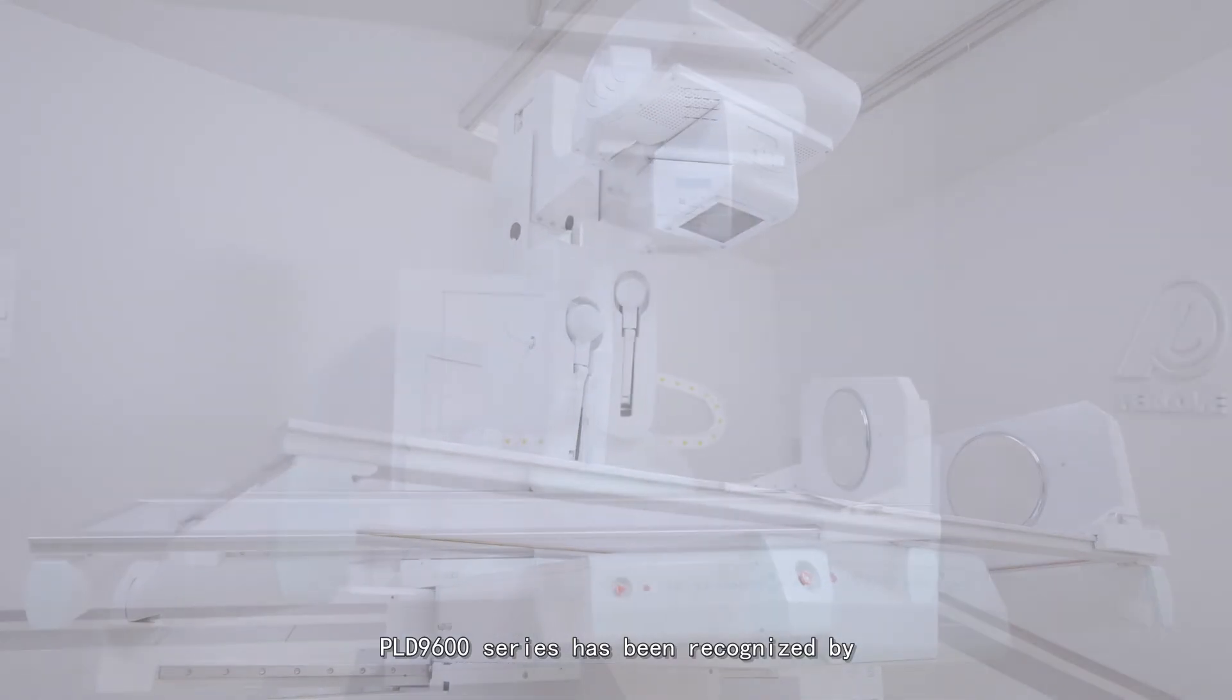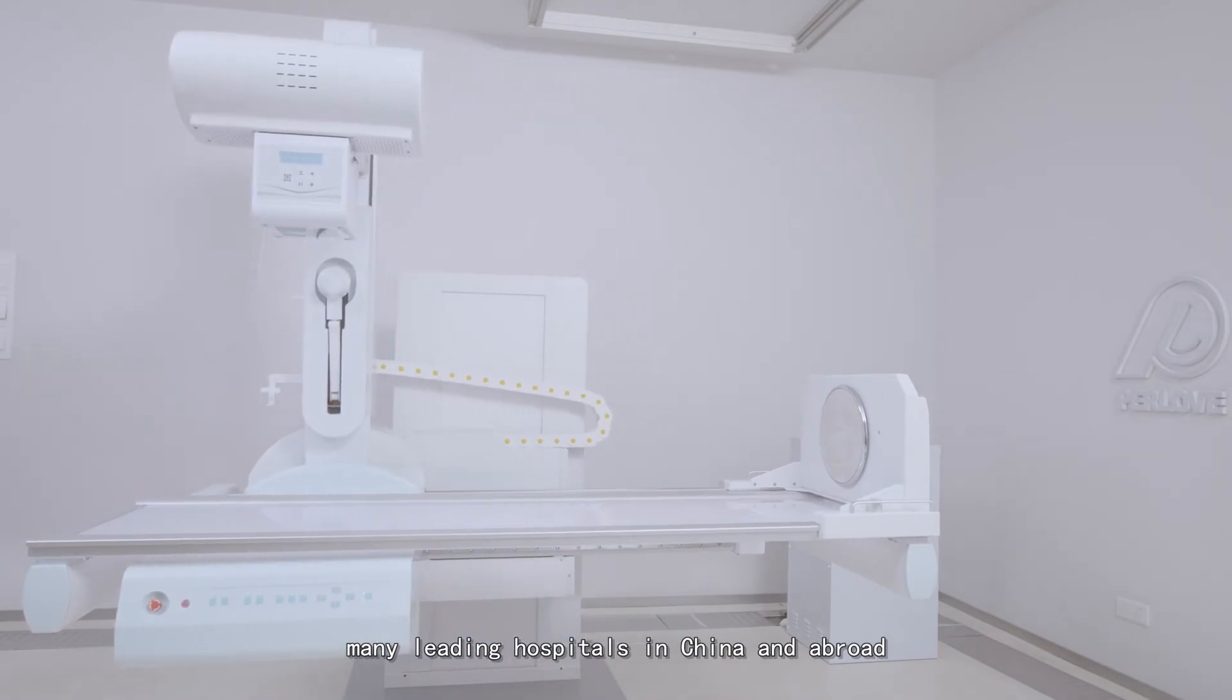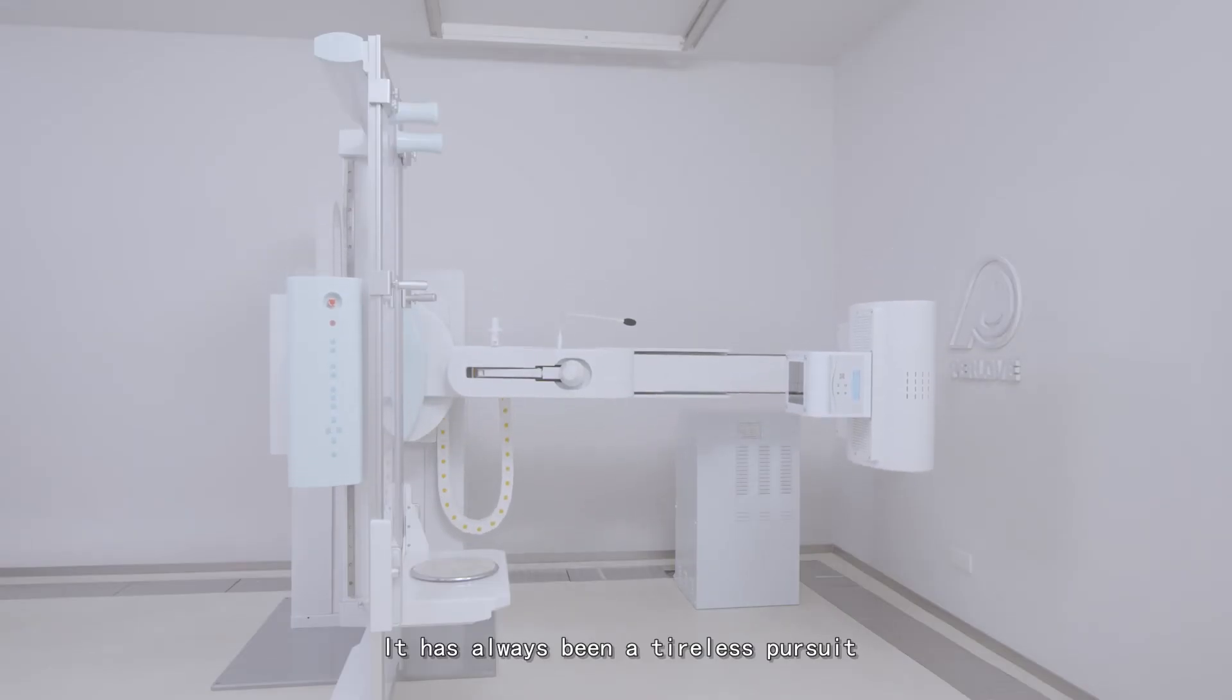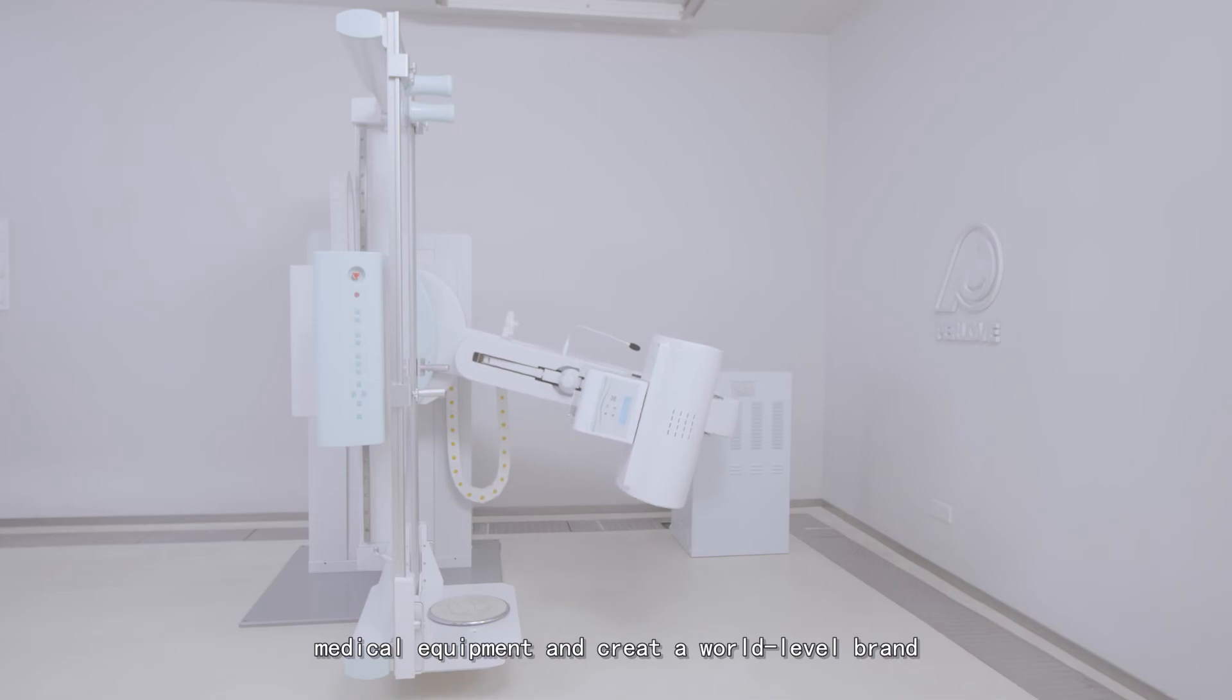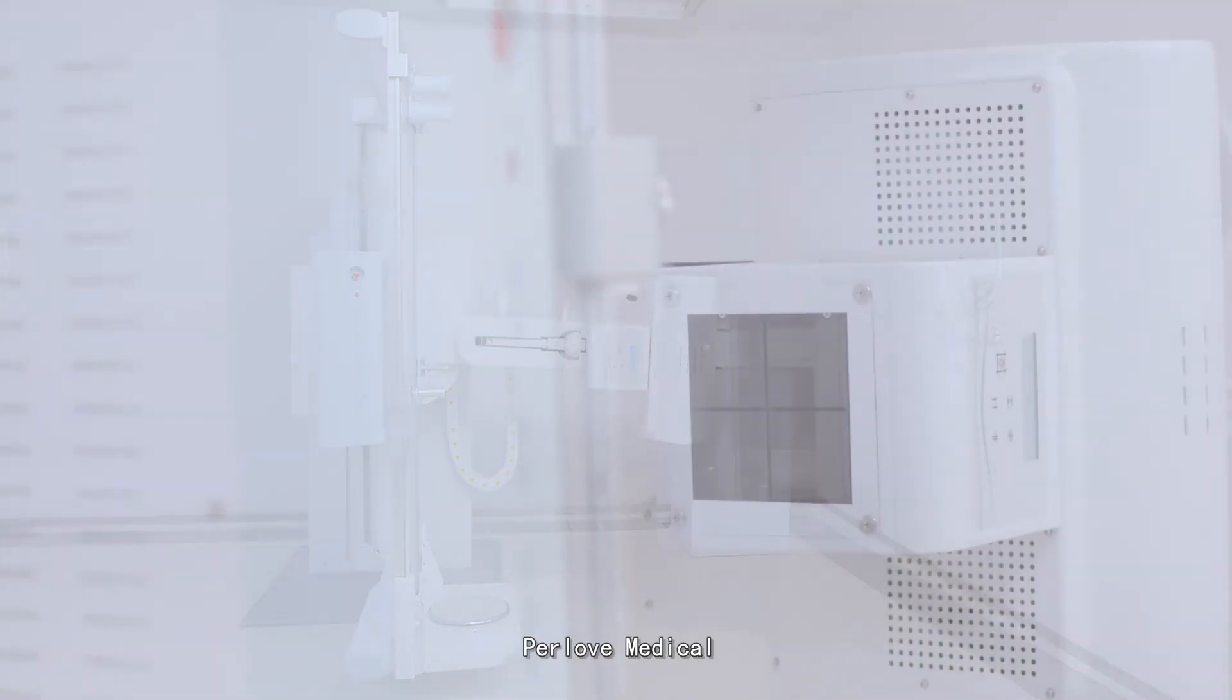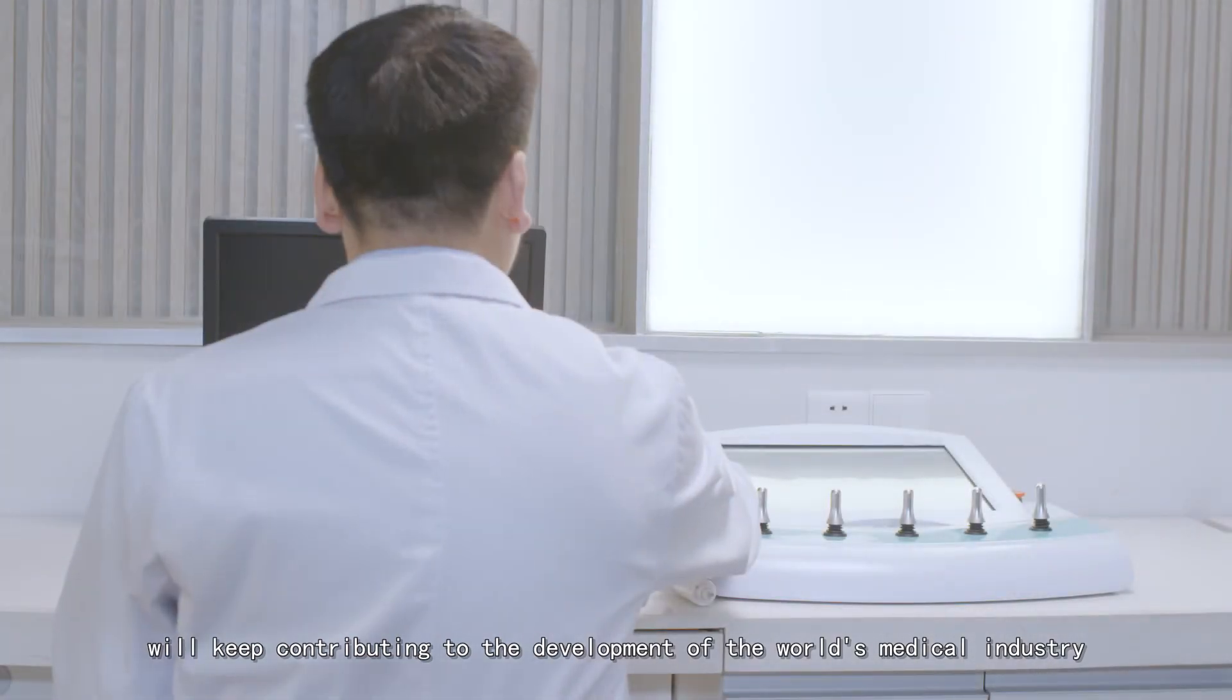PLD9600 series has been recognized by many leading hospitals in China and abroad. It has always been a tireless pursuit and dream of Perlove to provide safe protection, medical equipment and create a world-level brand. Perlove Medical will keep contributing to the development of the world's medical industry.